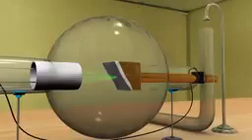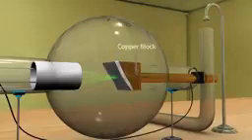This pencil beam is also accelerated by the cylinder towards the target. The target is made up of a copper block in which a piece of tungsten or molybdenum is fixed.